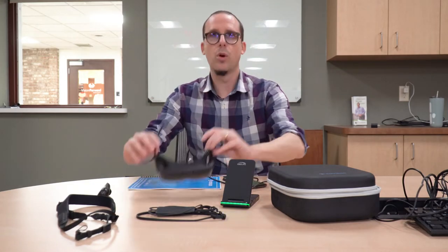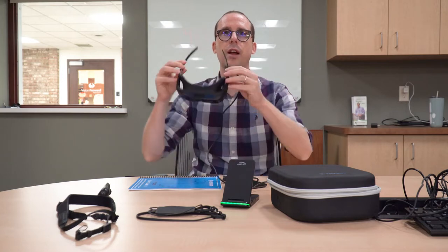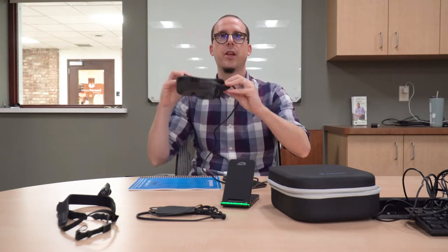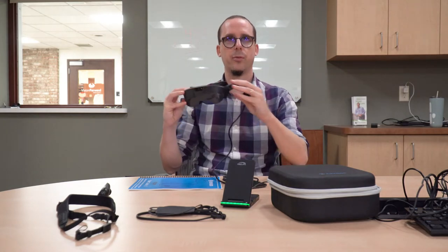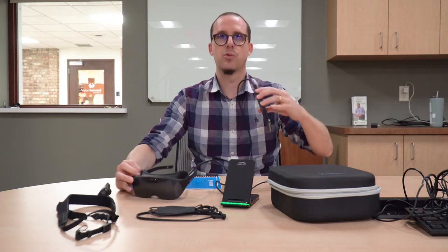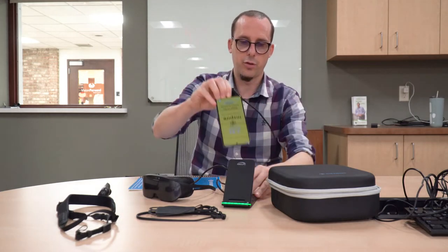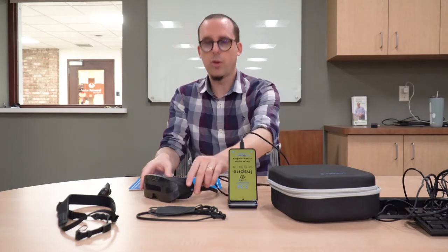And obviously we get the headset itself. The headset is one of the big changes with this new IrisVision device. It's a very nice design and it looks a bit more like a pair of sunglasses than some other wearables. It is tethered to a smartphone that does the image processing, and to charge our smartphone we place it onto the wireless charger here.